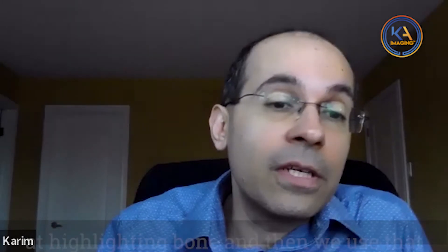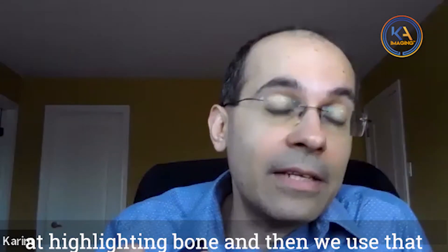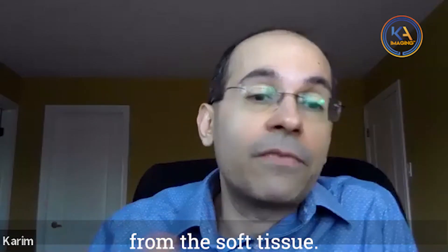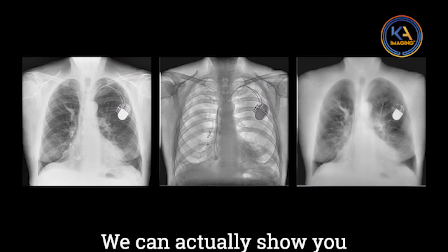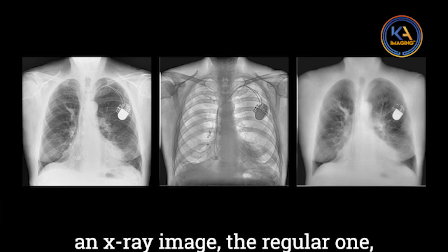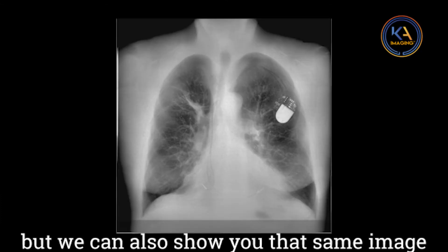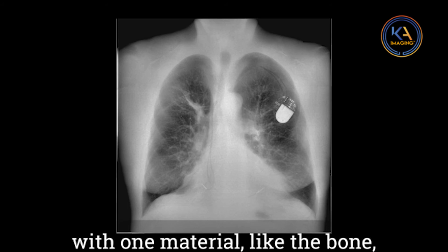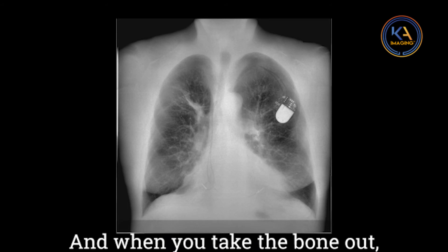We use those two energies to basically separate the bone from the soft tissue. When you look at our images, we can show you a regular x-ray image, but we can also show you that same image with one material — like the bone — completely taken out.